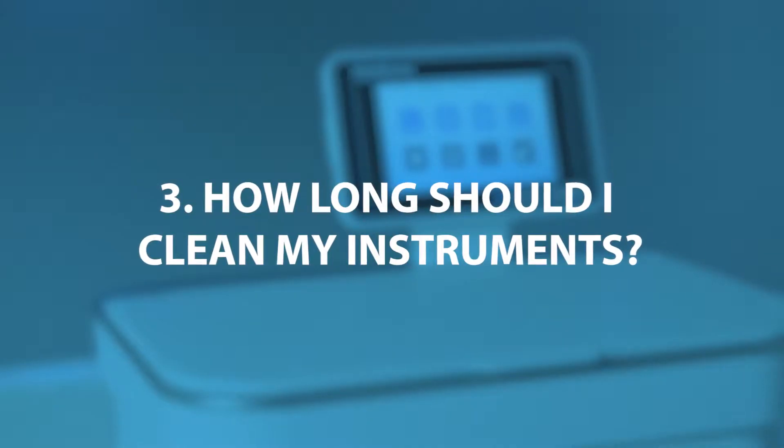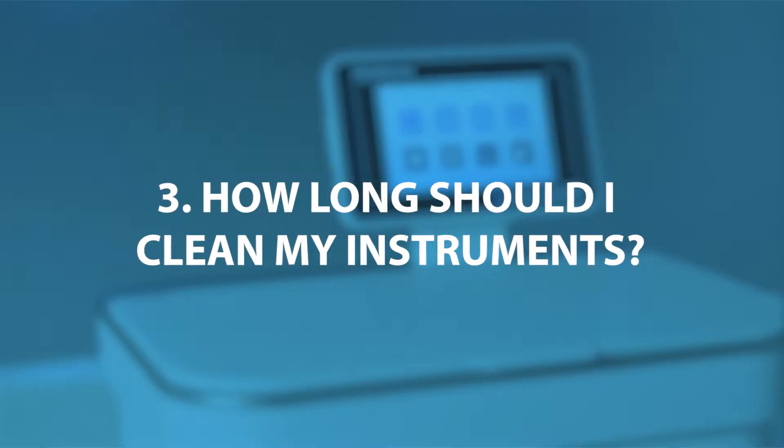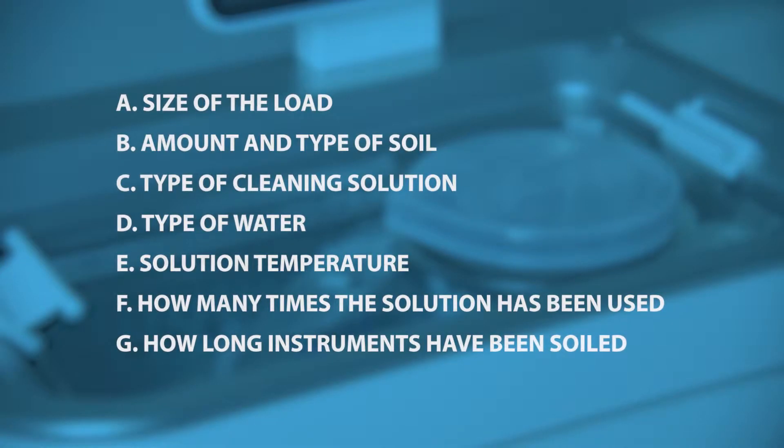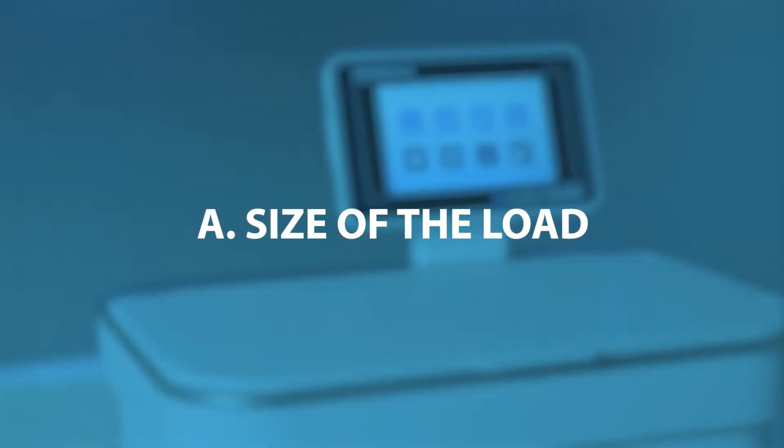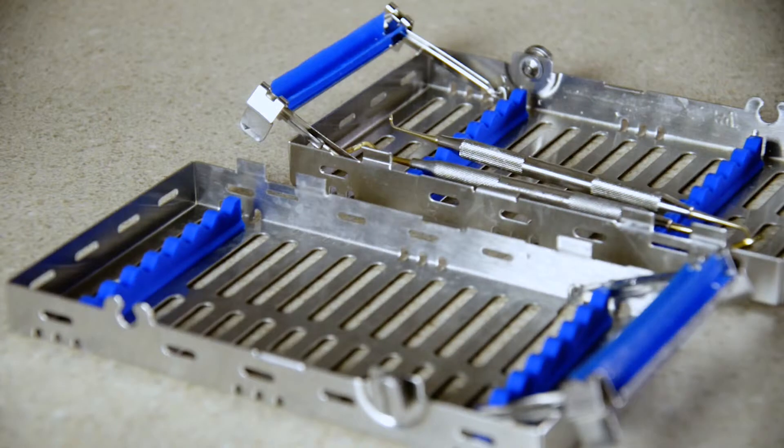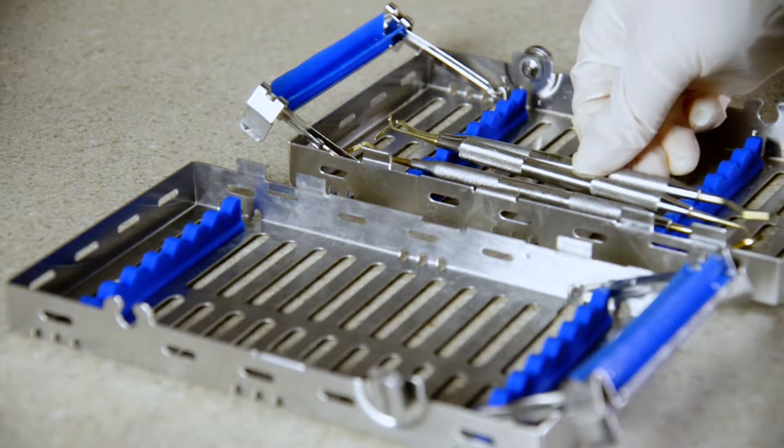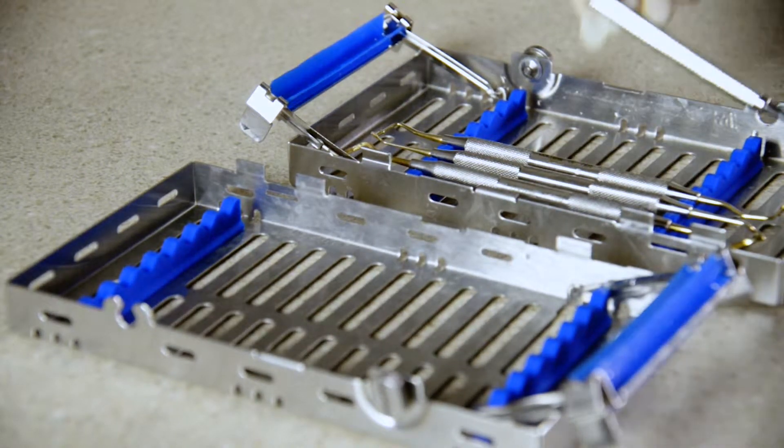How long should I clean my instruments? There are several parameters to consider when determining the duration of any cleaning cycle. Size of the load being cleaned: the more instruments placed into an ultrasonic bath, the less effective the cleaning.